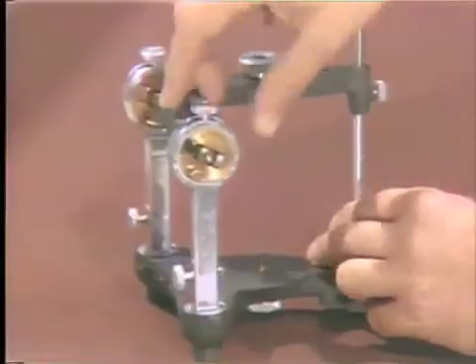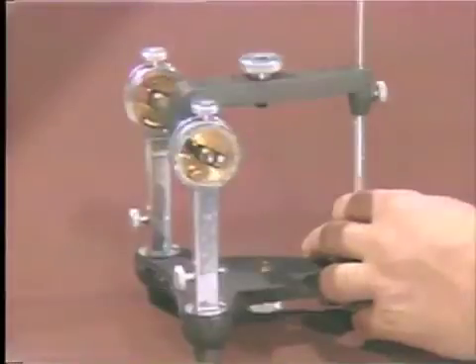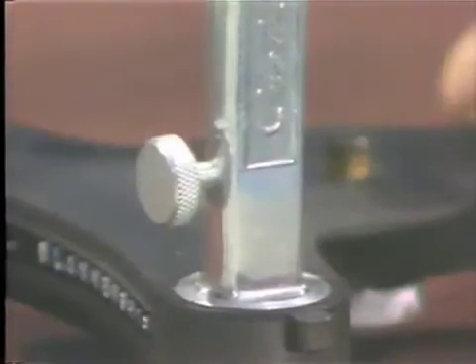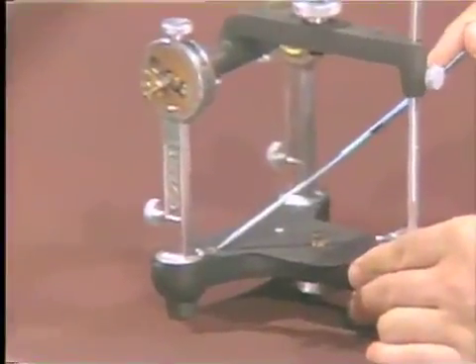This part of the articulator also rotates in this fashion by loosening the bolt in this vicinity. It allows us to make such a movement. You can see these numbers registered at this part of the instrument, which record this axis of rotation. This has been referred to as Bennett's Angle.